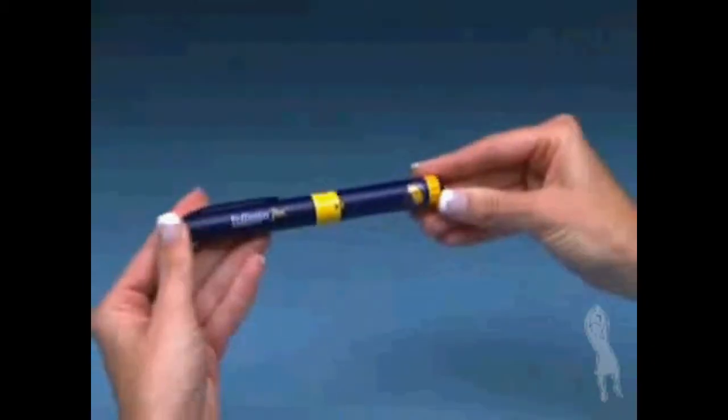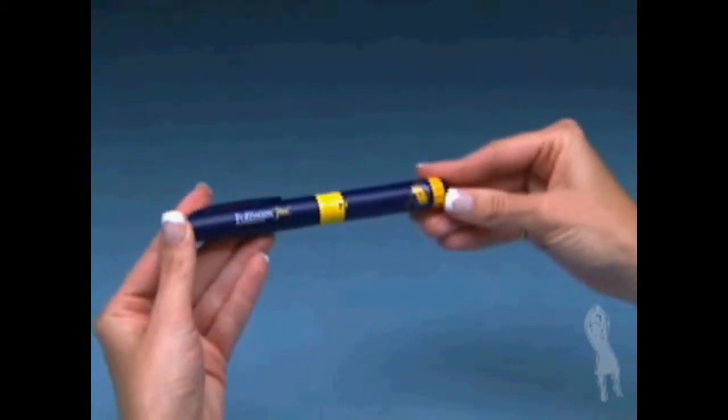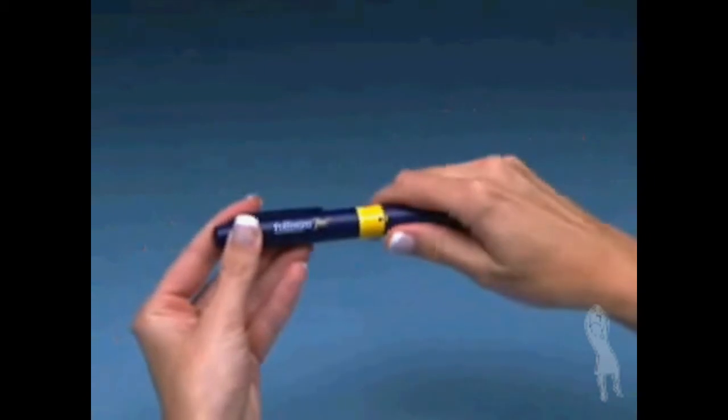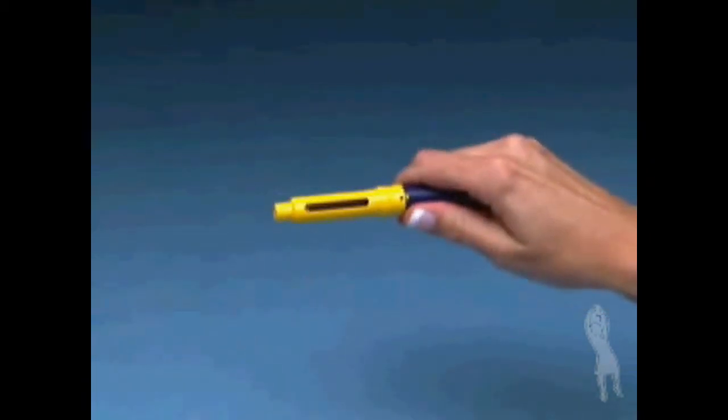Hold the pen body firmly in one hand and pull off the protective cap with the other hand. Place the cap aside on a clean dry surface.